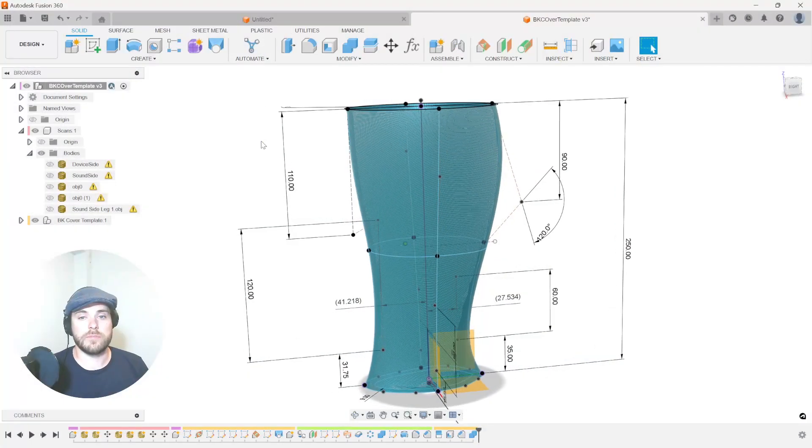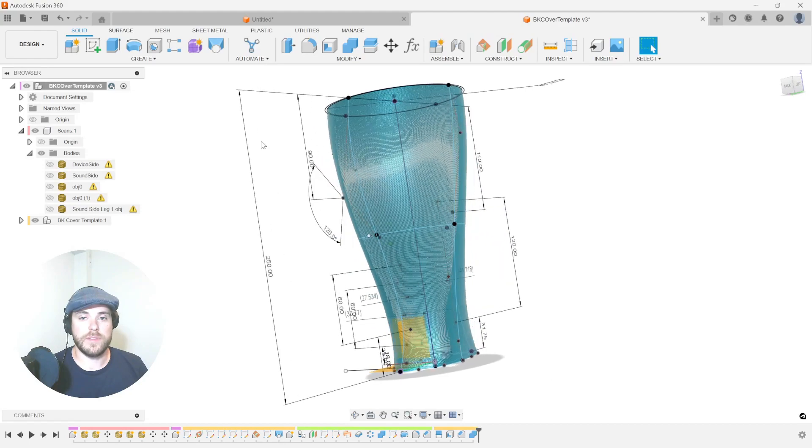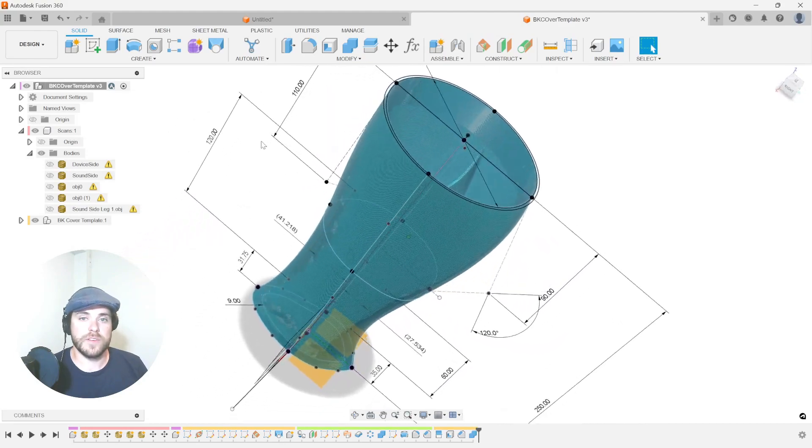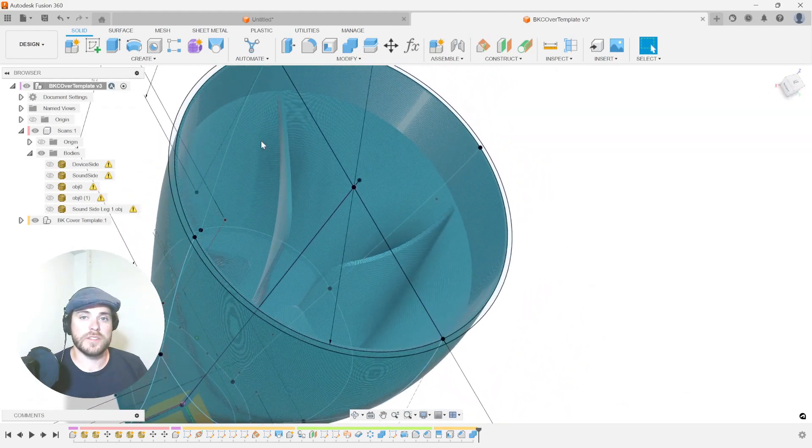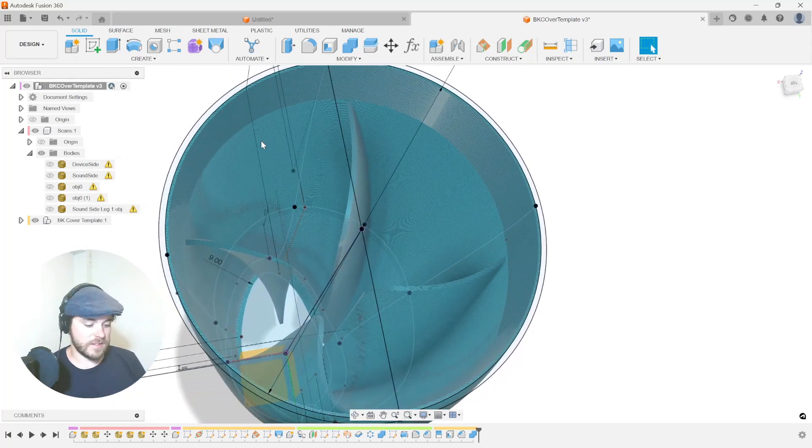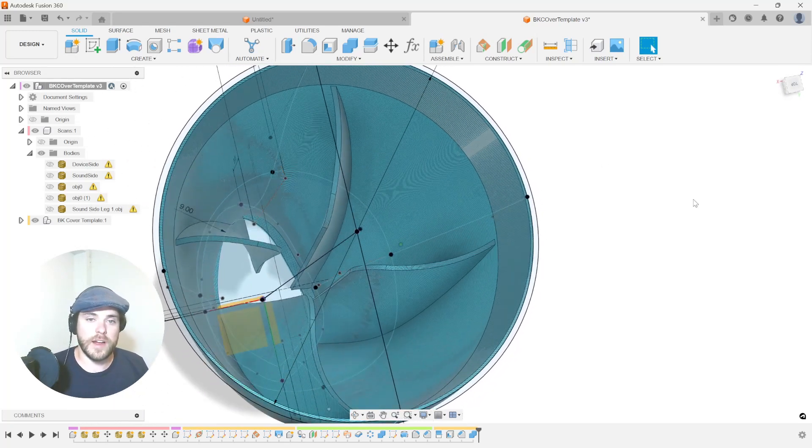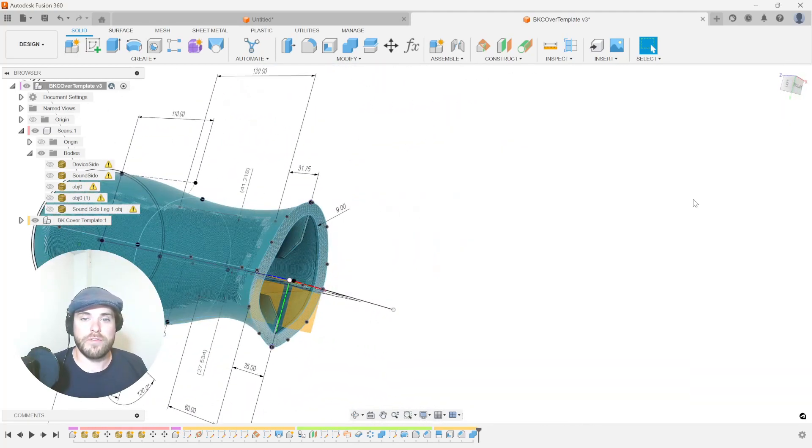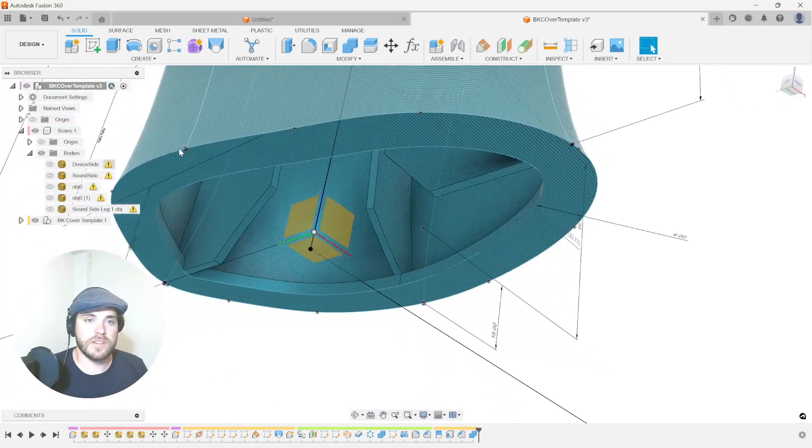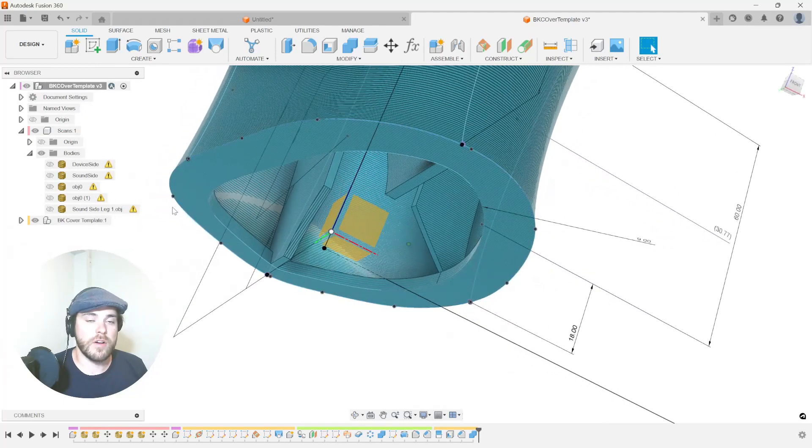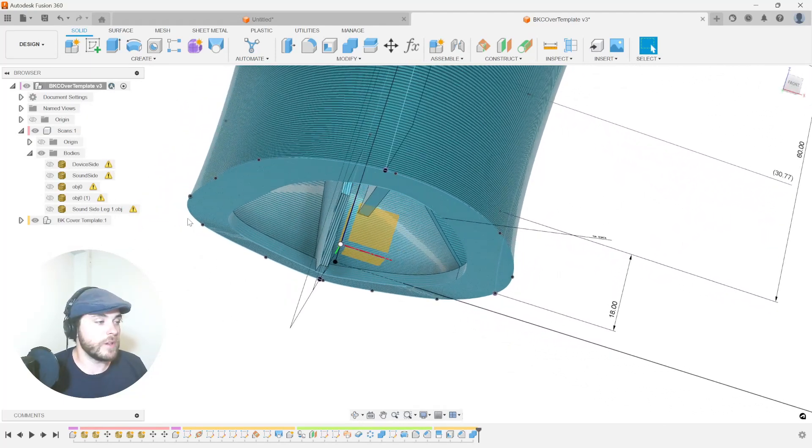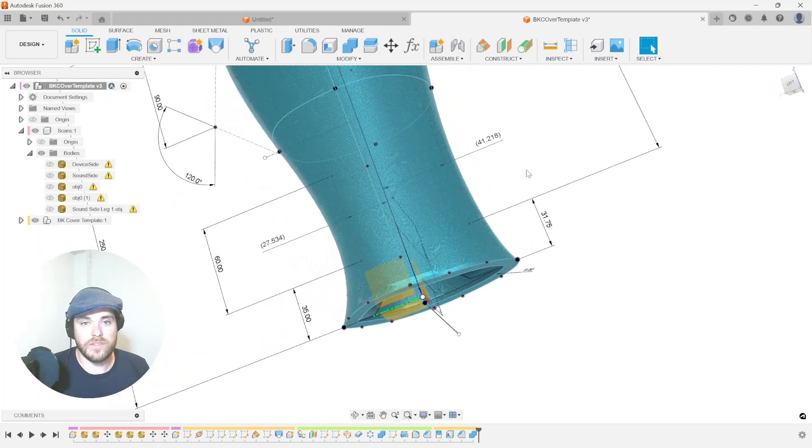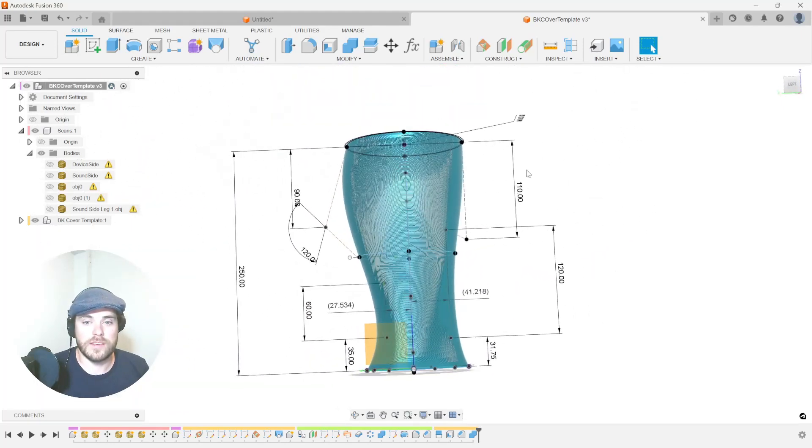So we have a template of a BK Cosmesis, and it's got some cool features. It's got a thin rimmed wall at the top, it's got ribs on the inside so that it will grip the pylon at 30 millimeters wide in diameter, and then we have a print wall at the very bottom. It gives us a nice 12 millimeter lip to print on using an FDM printer so we know we get good bed adhesion. These are some of the complex features that we decided to put into this product.